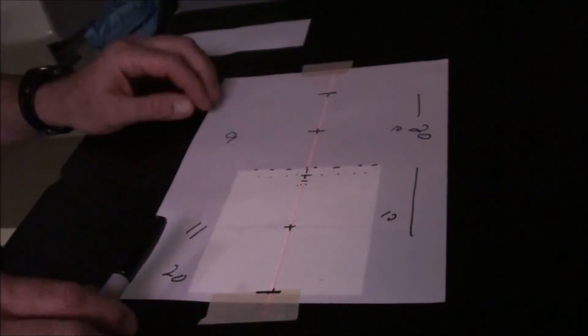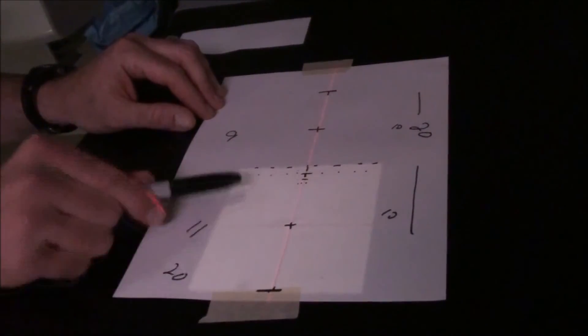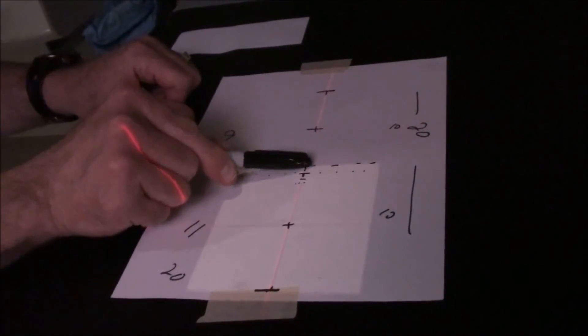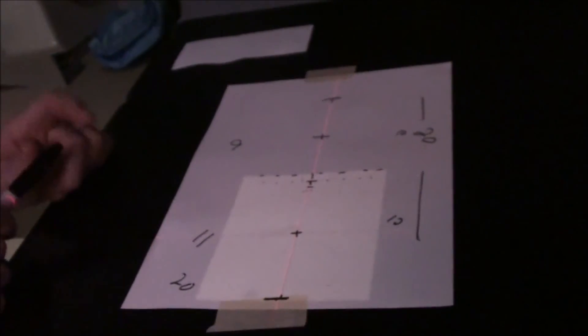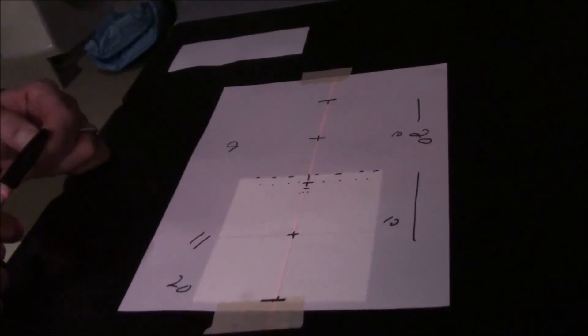By doing table shifts and field size changes, we can treat that same volume and move this junction to various places. So that, in a nutshell, is how a junction shift works. Thank you very much.